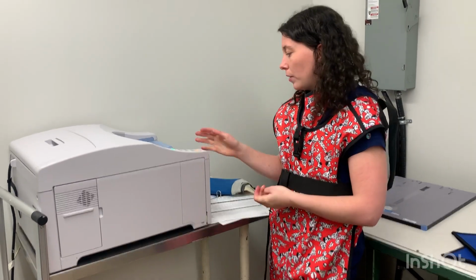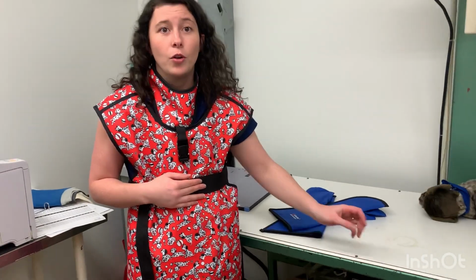But that's the difference between using an automatic processor versus doing it by hand, or by using the processor for the CR unit, as they explained. With a digital unit, you don't have to change the latent image into a digital image by using a processor. It connects directly to your computer without a processor. Everything is done within a built-in plate. The plates are built directly into the table. You don't have a cassette where you need to take it in and out, and everything from the latent image all the way through to the digital image is all done through the plate that's already in the table. There's no processing involved.